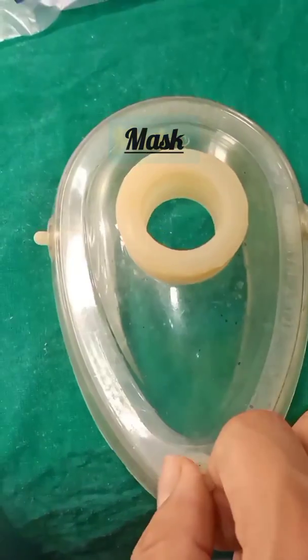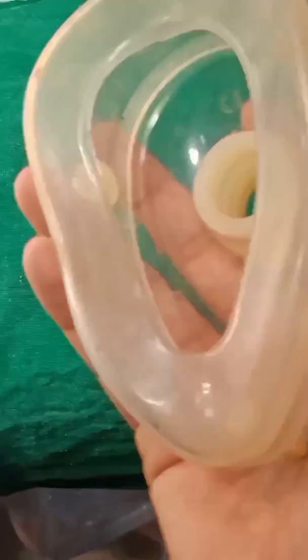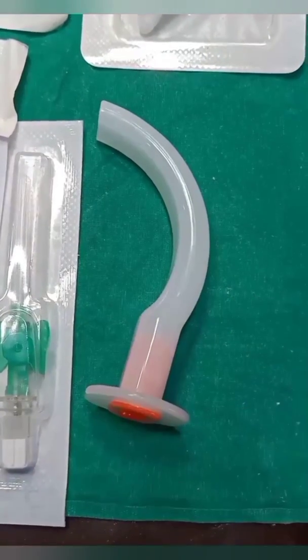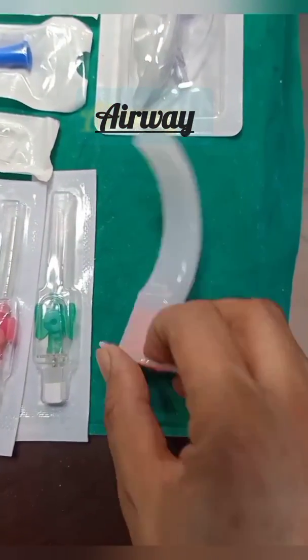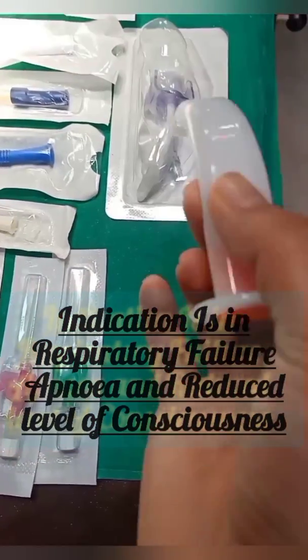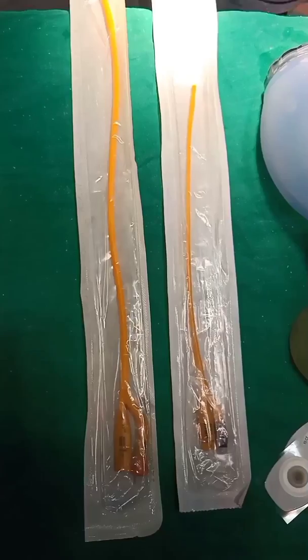Now you have the mask. When we want to give respirations during CPR, we will attach this with the help of the ambu bag and place it on the mouth of the patient to give respirations. This is the airway device, and it basically prevents tongue fall. In the case of trauma patients, we will put it in this direction.